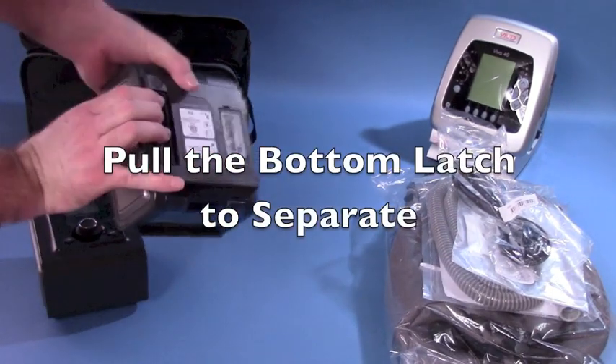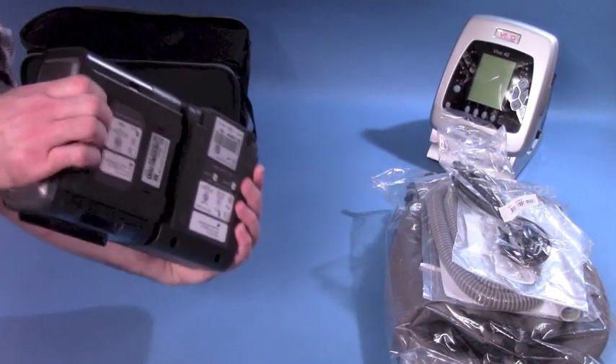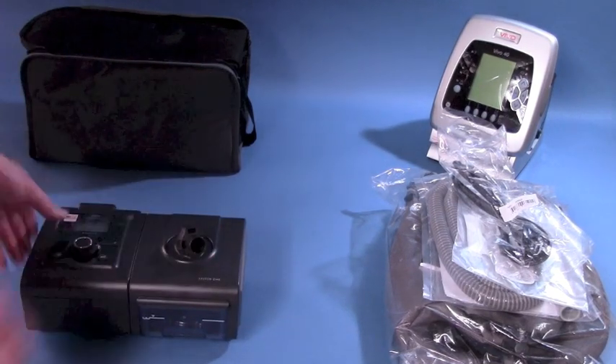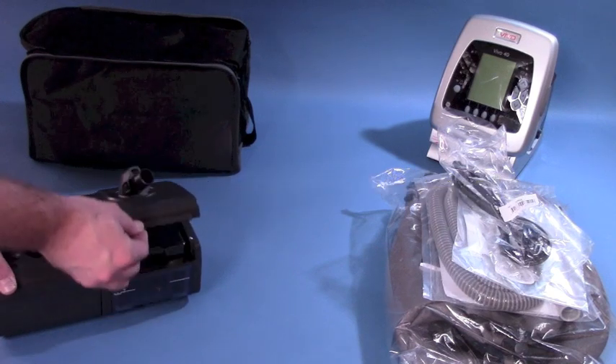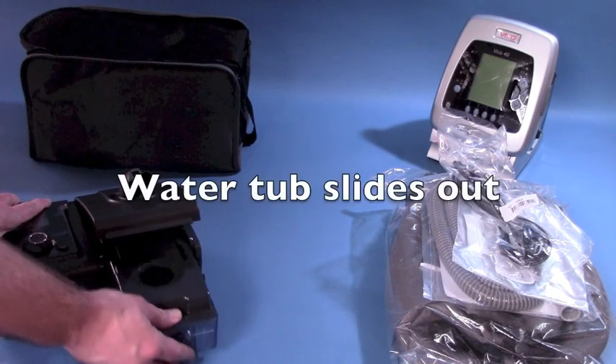Get clinical support in a compact, user-friendly machine. Unlike other standard CPAP machines, the System 1 Advanced BiPAP ST delivers both inhalation and exhalation support. This makes breathing easier and more comfortable as you aren't fighting against a constant pressure. For users with a higher pressure prescription, exhalation support is especially important.